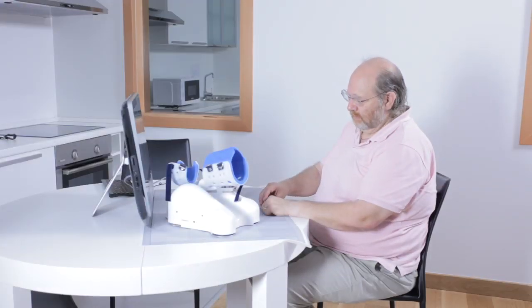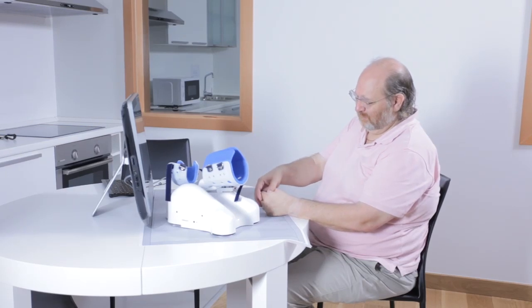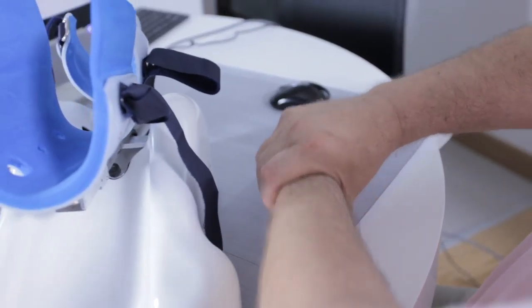No commercially available device for home use is capable of providing quantitative measures for the position and orientation of the hand and forearm.